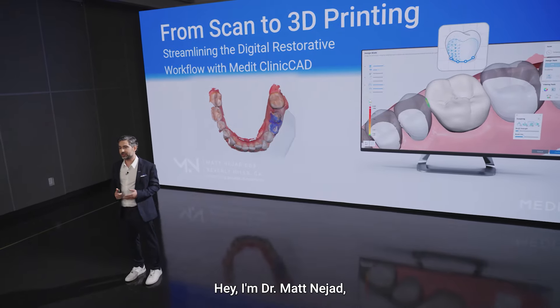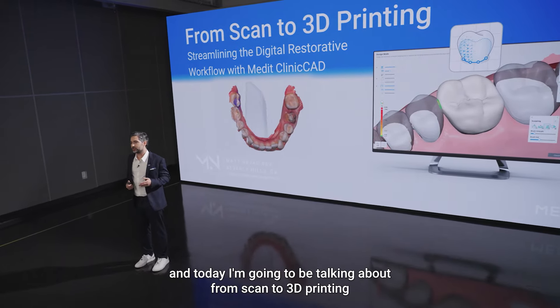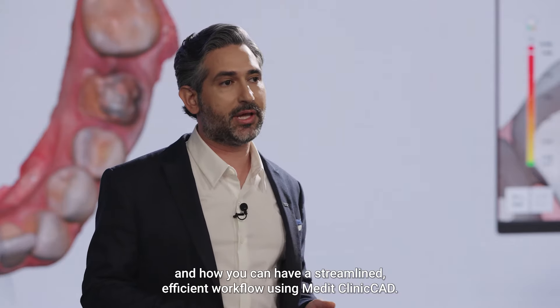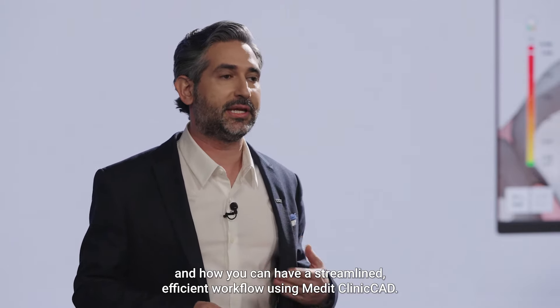Hey, I'm Dr. Matt Najad and today I'm going to be talking about from scan to 3D printing and how you can have a streamlined, efficient workflow using Medit Clinic CAD.